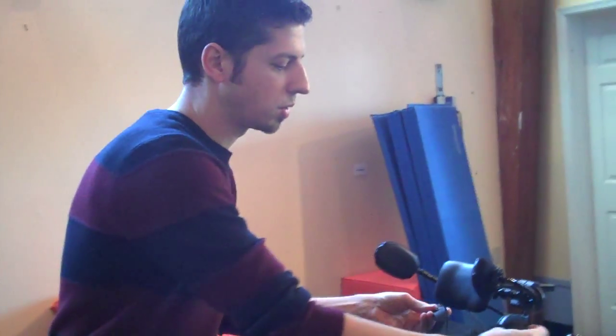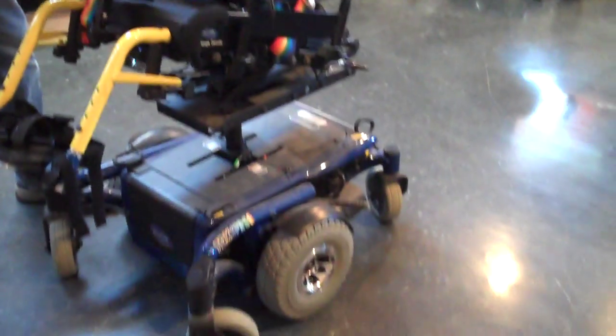It's mid-wheel drive, which is great for kids who are learning to drive because that mid-wheel creates a nice center place that the chair spins on. If it were rear-wheel drive, the chair would spin on its rear. If it were front-wheel drive, the chair would spin on its front.